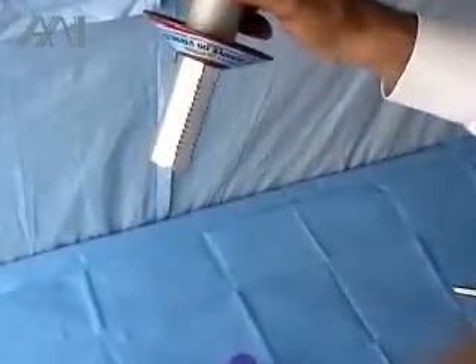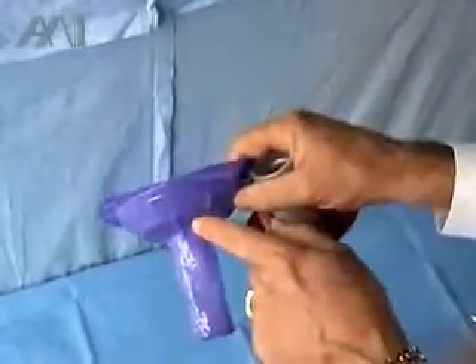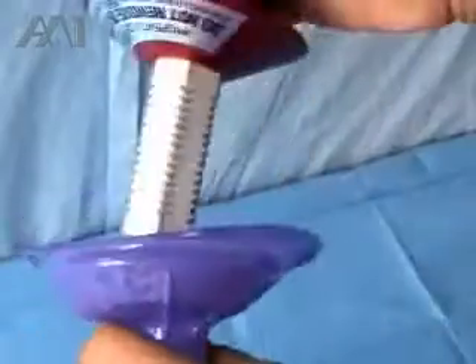To eliminate those issues, we have developed a new light handle cover with a flat flange, a tapered flange, and an undercut. And I'll show you how that works.